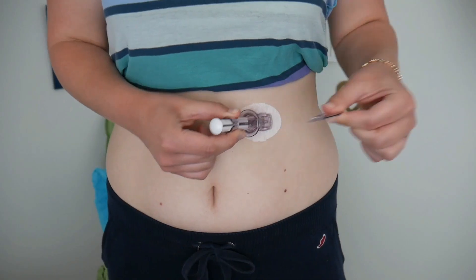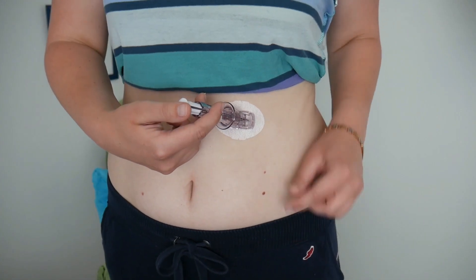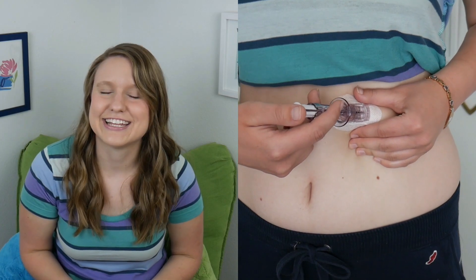Now, remove the lock — just pull straight out. Then, you want to place your hands like this. You want two fingers above the collar, which is the circular thing near my hand. Then, pinch up the skin and insert the needle by pushing down on the plunger. You will hear two clicks.